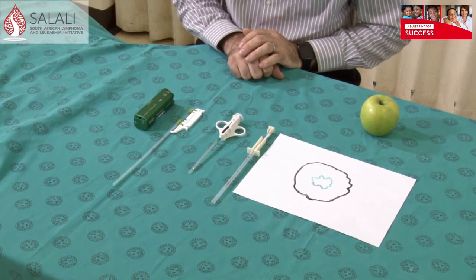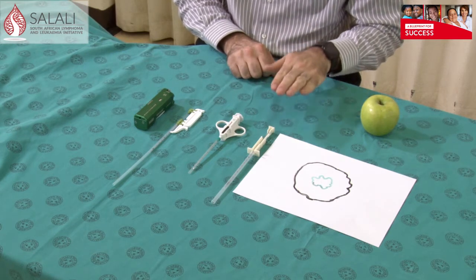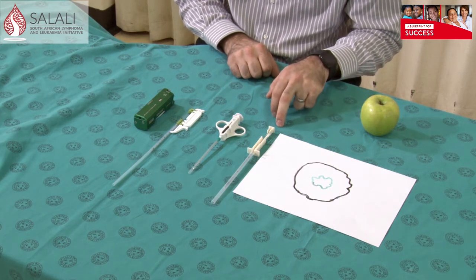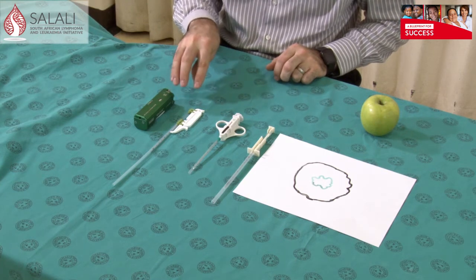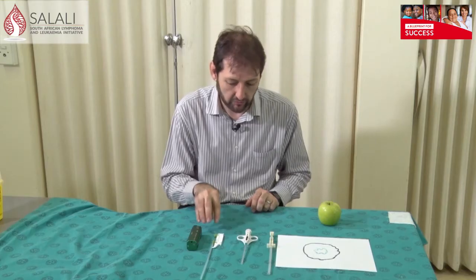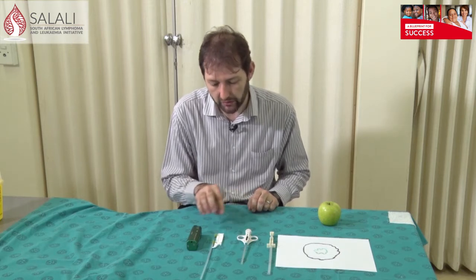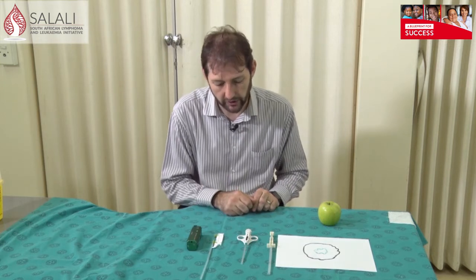The only problem with these fully automatic needles is that they're very expensive. The handheld needles are less expensive and are often the most commonly available ones. The automatic needles are obviously the most expensive, but may be of great benefit because you get a much better quality biopsy and the amount of repeat biopsies will be much less with a fully automatic system.